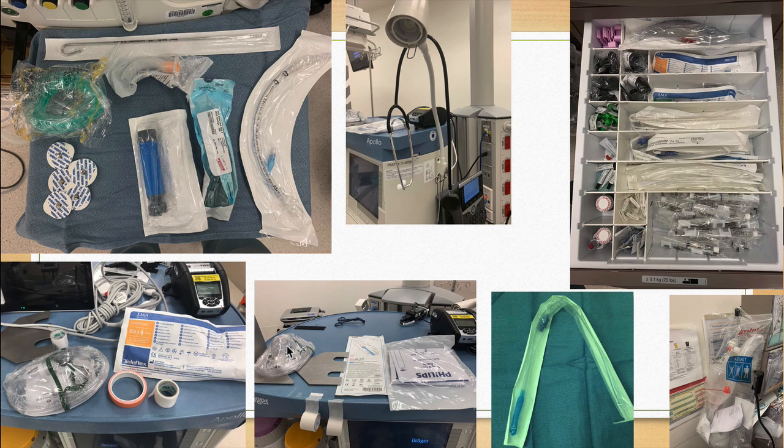Here's a face mask for the end of the case. Same thing here, different types of tape. And in this setup, there's actually a backup airway on top. I find it, though, it's so easy to just grab the LMA if you know where it is, that it's not always necessary to do this. But again, dogma runs rampant in anesthesia, and you might find a provider that disagrees, and that's okay.